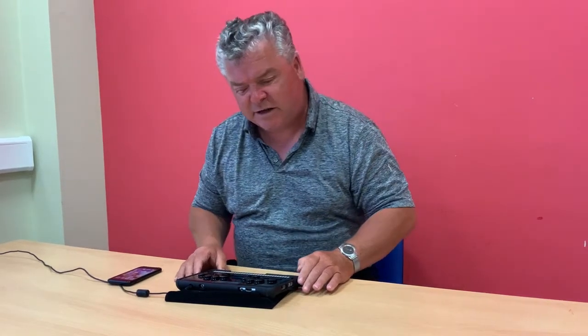Today we're going to concentrate on how to switch on the device, and we're going to look at the menu options and menu structures — how to move through the different options. We're also going to connect the BrailSense Polaris to an external device, using my phone as an example.